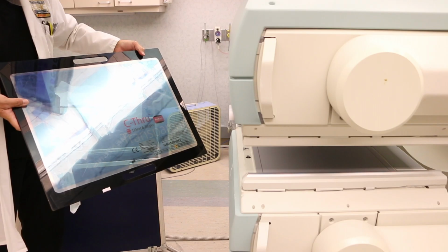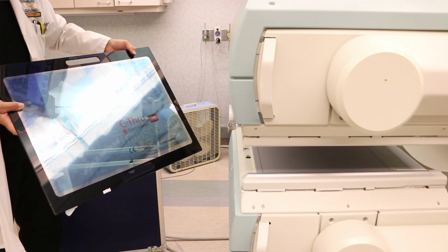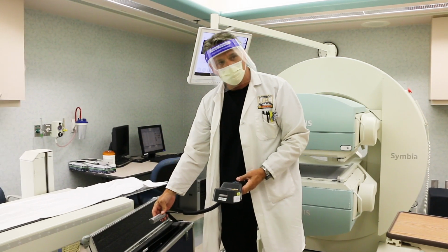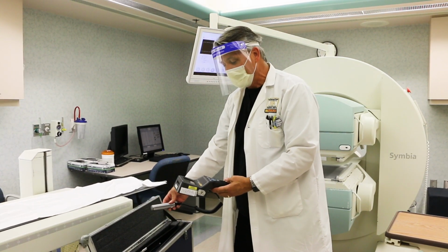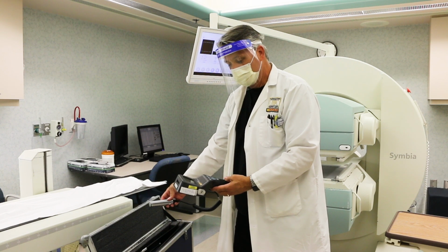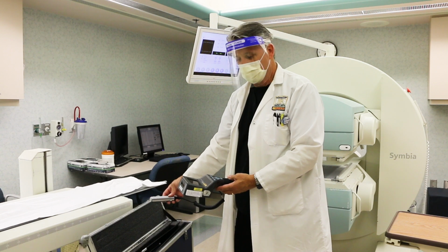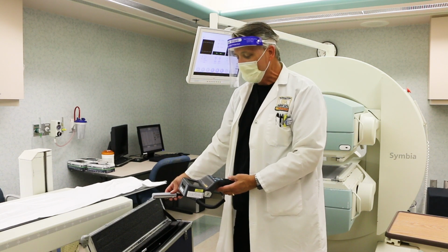Sheet sources are about 10 millicuries when new, and while not too hot, should not be handled any more than is necessary. Even with both sources present at the same time, the exposure level is low enough to handle them without undue risk. Thus, although the extrinsic flood source test takes about 6 minutes, the low levels of radiation of the source allow them to be used for daily quality control with an acceptable level of exposure for the technical staff.